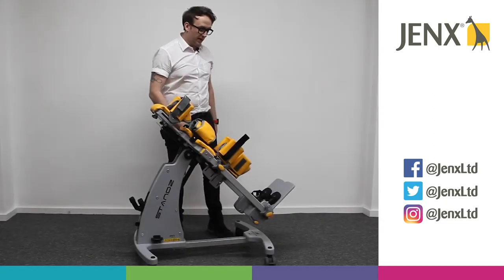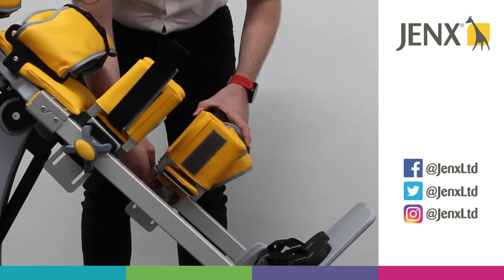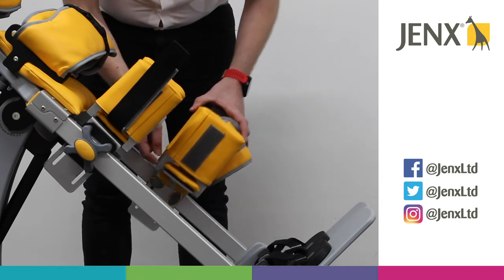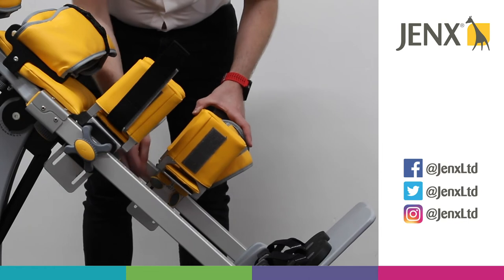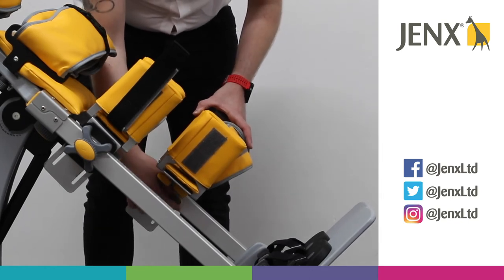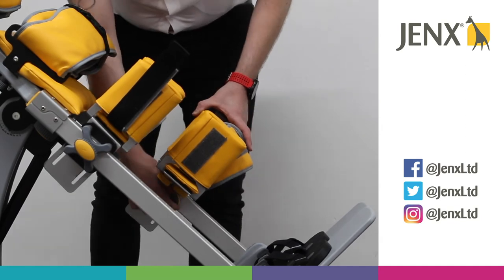In order to accommodate any knee flexion, we have two wing knobs here that we can loosen. We're then able to bring the whole knee pad out to support, or back in for a fully extended knee. We can then tighten those wing knobs once we have the knee pad in the correct position.